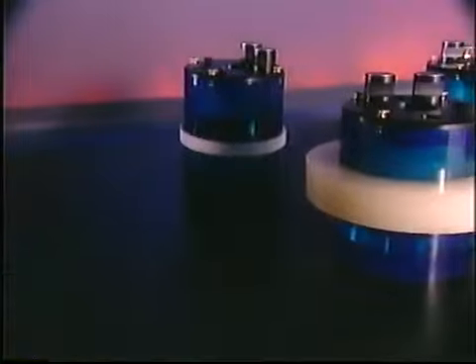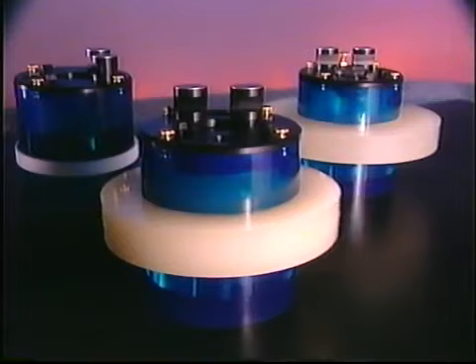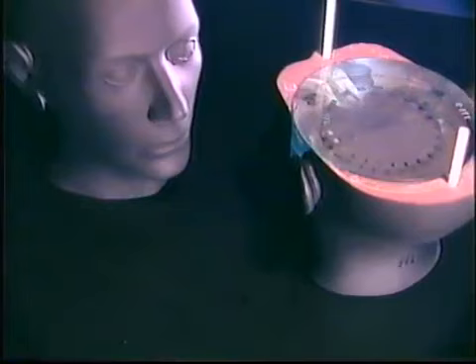In CT, the performance of the scanner is affected by a number of variables, and one of the most basic is the change in attenuation, which is brought on by the different sizes of patients or going from a head to a body. And to address these concerns and to be able to evaluate how the scanner's performance is in these different areas, we've developed a series of annuli which enable you to use different sized bodies or simulate the beam hardening effect of the skull and the head. Additionally, we've done research utilizing anthropomorphic shells and shapes, and that's something that is available to customers on a custom basis.